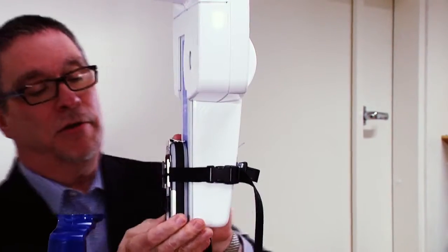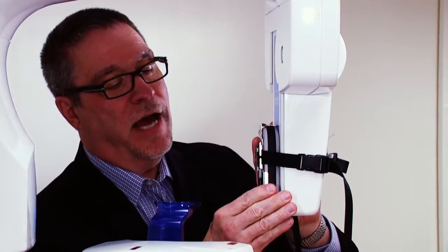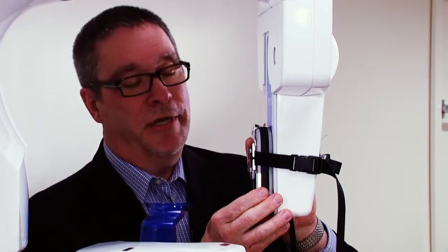Once you have them clipped together, you can adjust the Piranha up or down, or to the side, to make sure that the beam from the tube hits the Piranha where it should hit.